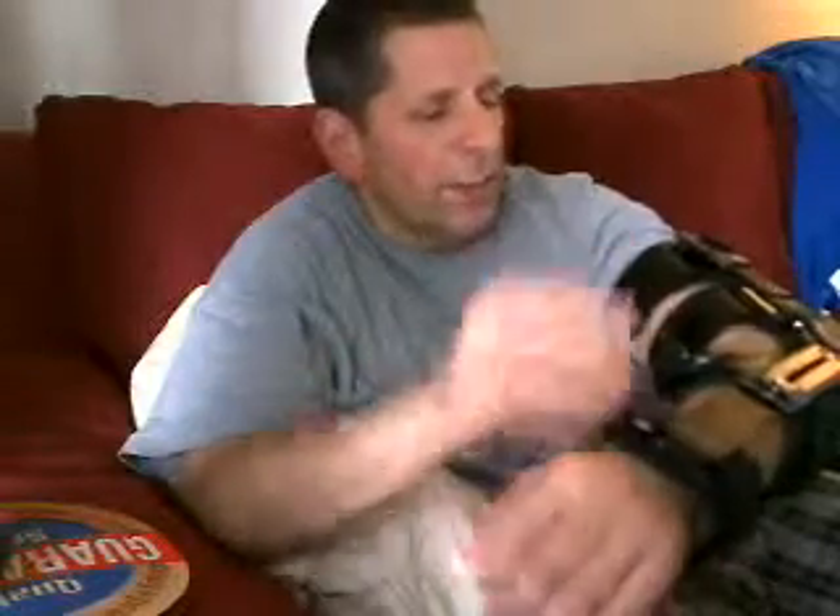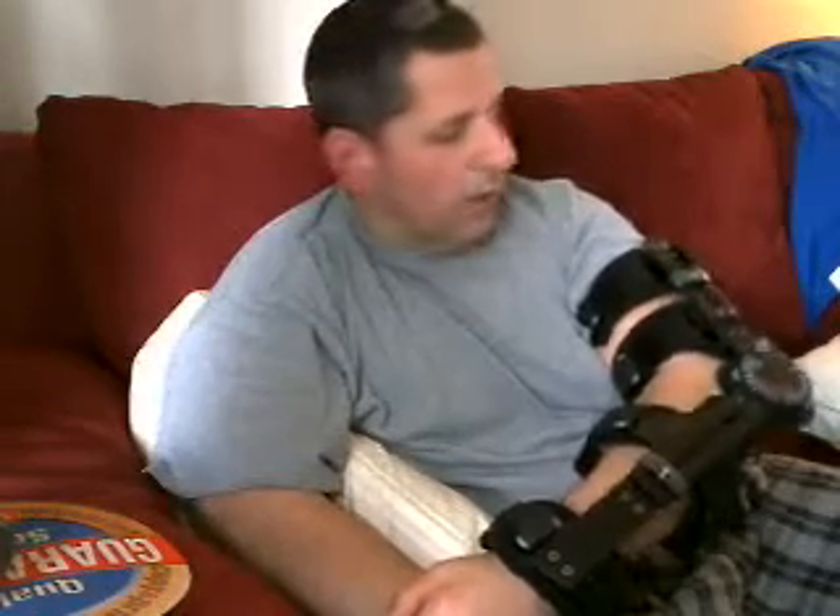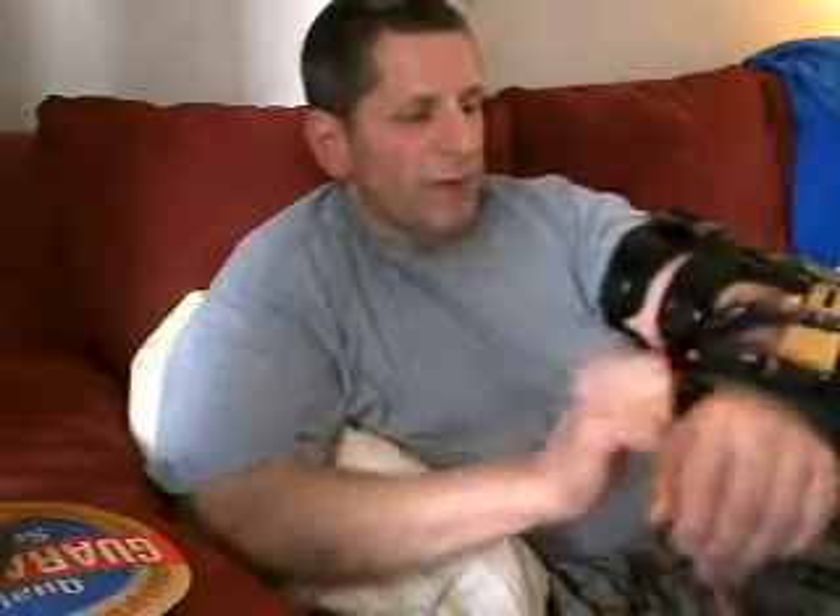So when I put a long sleeve shirt on later, I have to take it off, be very careful I don't open my arm up — I got to keep my arm in that position — and then put it back on over it. It just clips on, straps to adjust. I could put it over a jacket if I want, just adjust the straps accordingly.